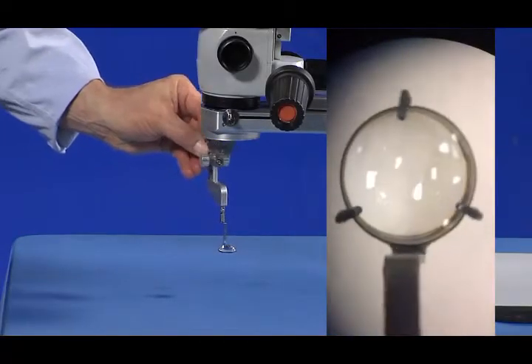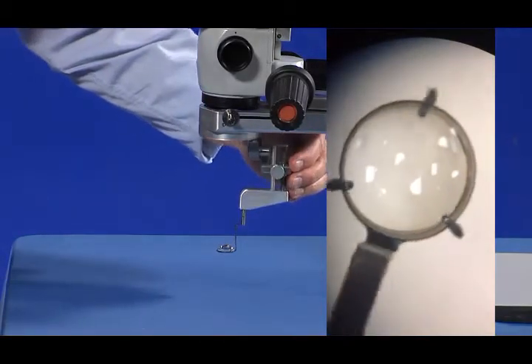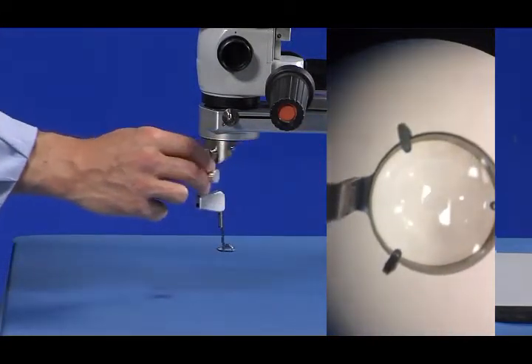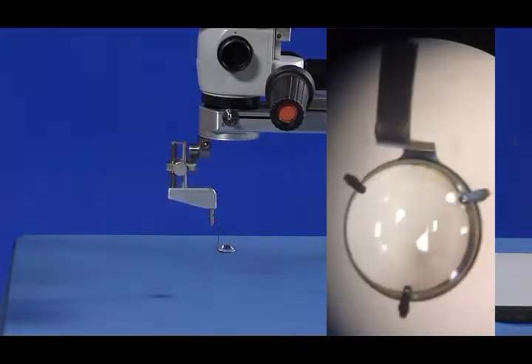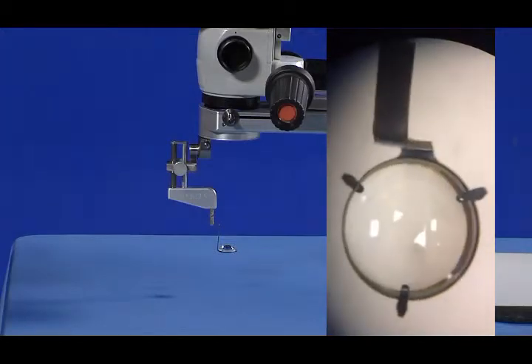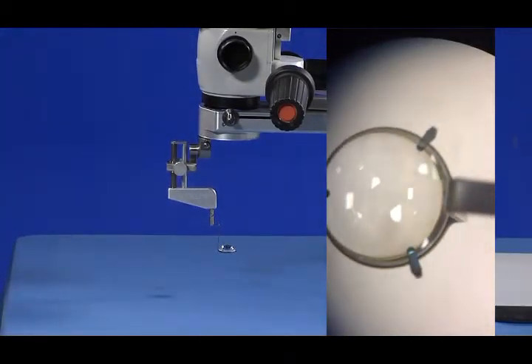To confirm correct positioning, rotate the LPU to the 3, 6, 9, and 12 o'clock positions and view the actual location of the lens relative to front-to-back positioning. The lens should remain centered as the LPU is rotated.